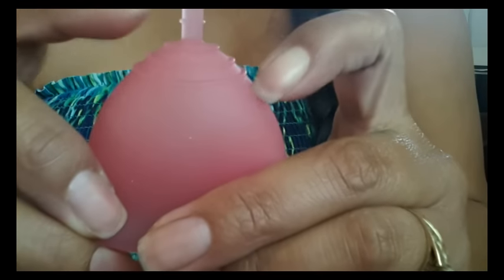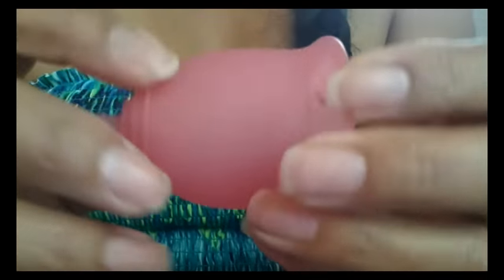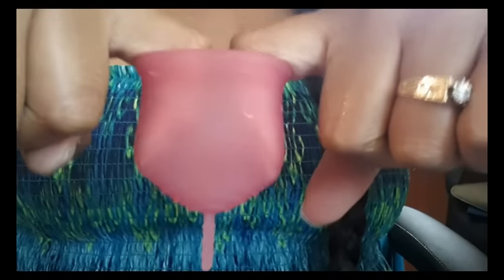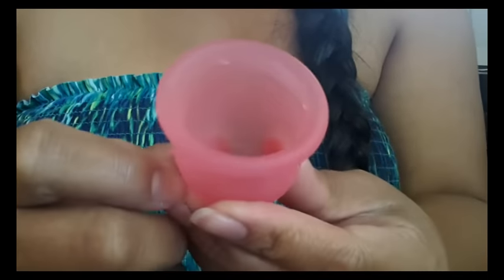There are three grip rings underneath and they're raised pretty well — they give a good sound. The silicone is really nice. It feels like a strong silicone that is going to last for several years, and if I put my fingers down in here and pull, it doesn't feel like my fingernails are just going to puncture right through the cup.